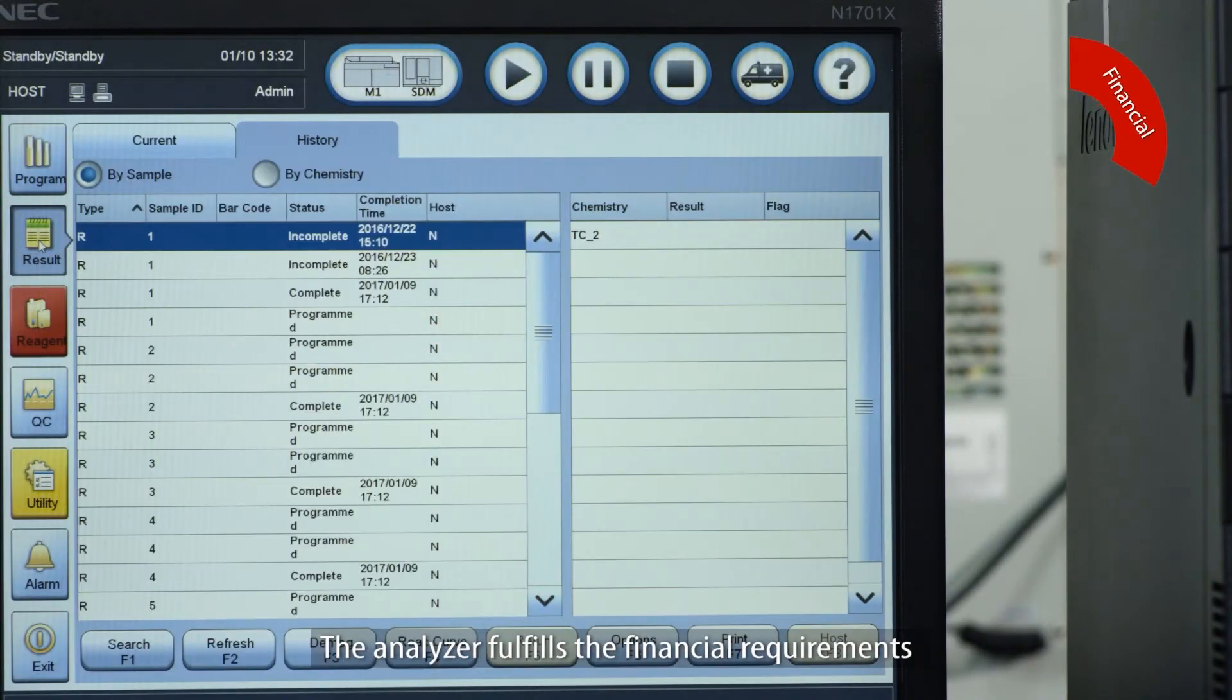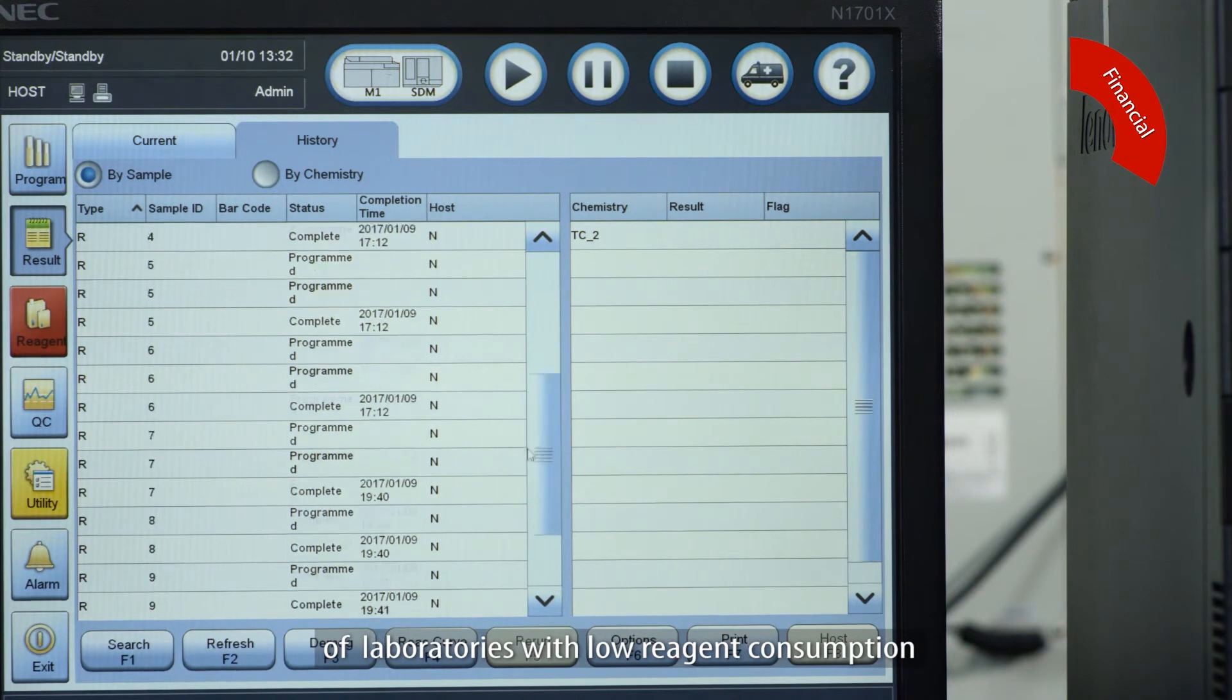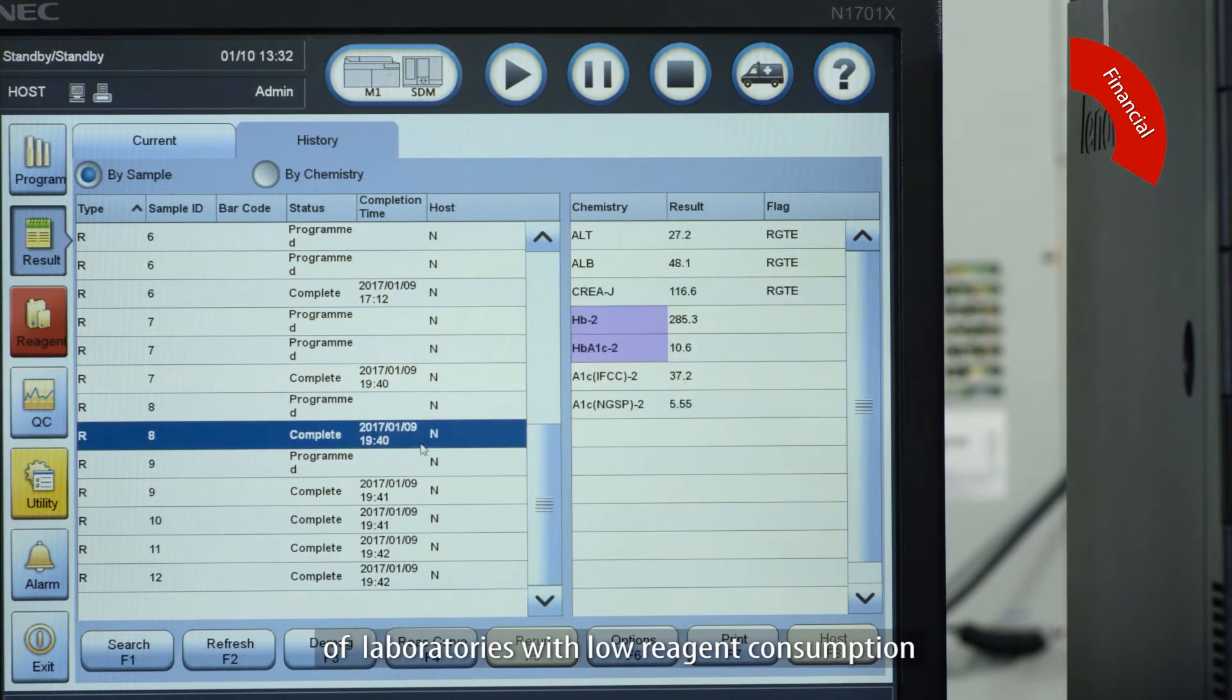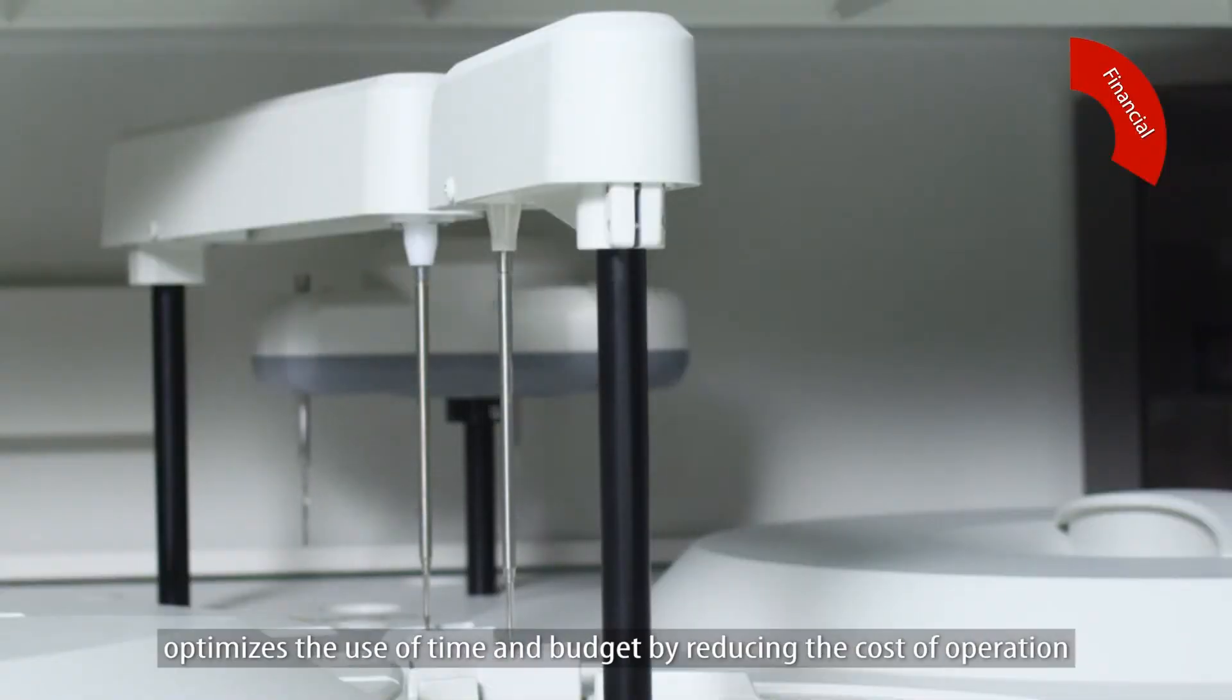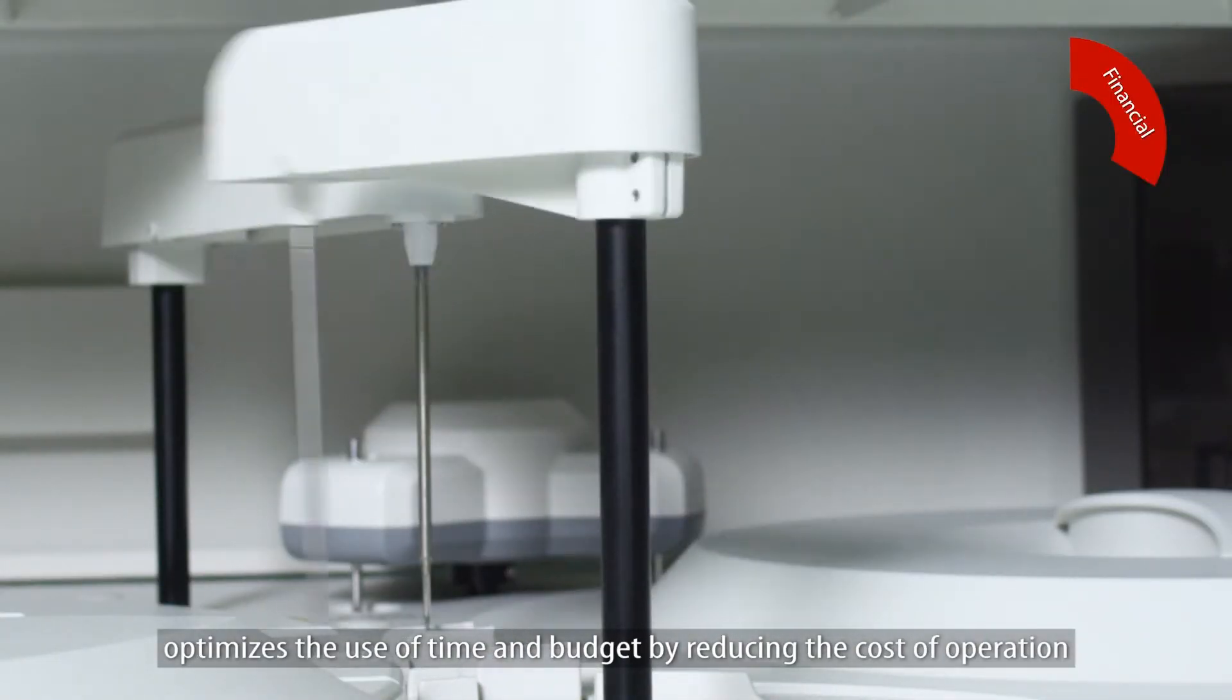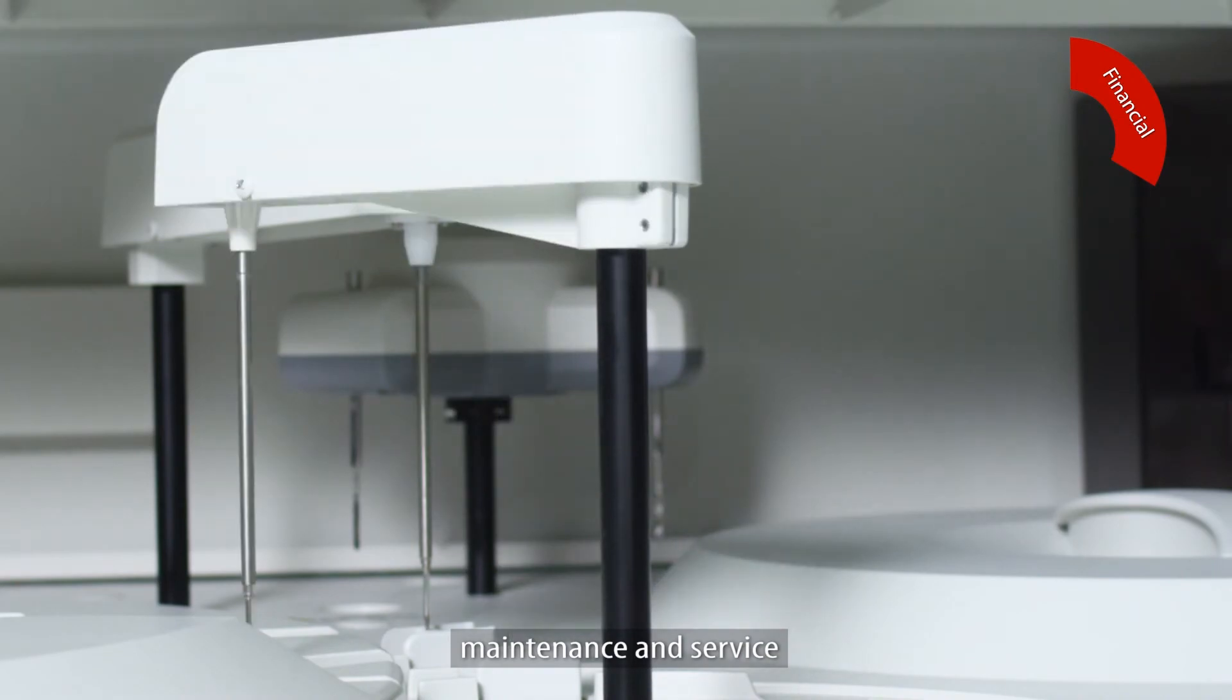The analyzer fulfills the financial requirements of laboratories with low reagent consumption. This fully automated clinical chemistry workstation optimizes the use of time and budget by reducing the cost of operation, maintenance and service.